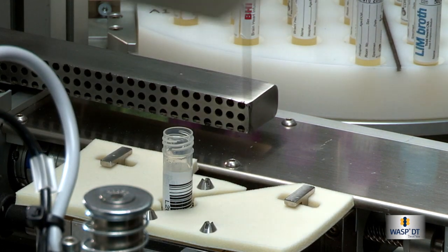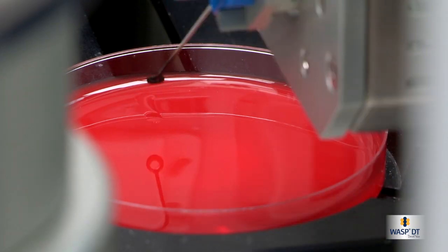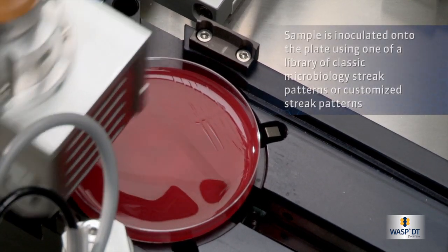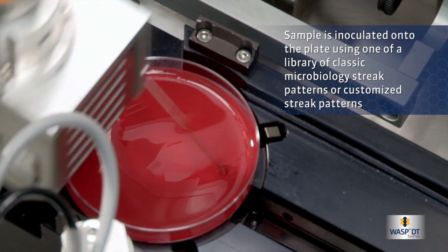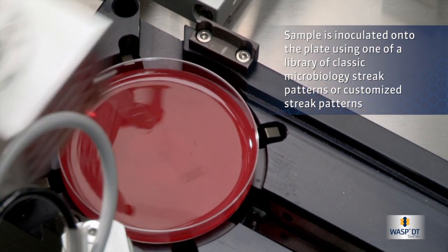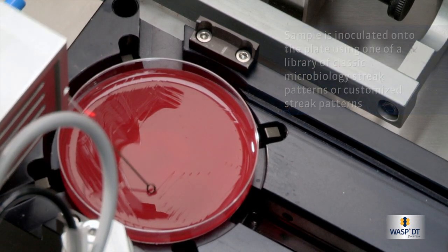After the sample is obtained, the loop is presented to the loop check to ensure accuracy of plating. The sample is inoculated onto the plate using one of a library of classic microbiology streak patterns, honed by years of expertise in reading plates. WASP can also accommodate customized streak patterns.